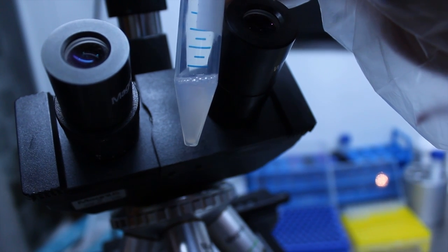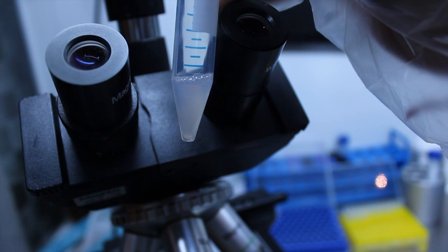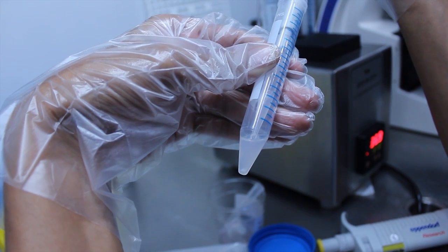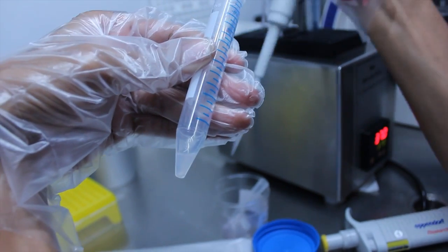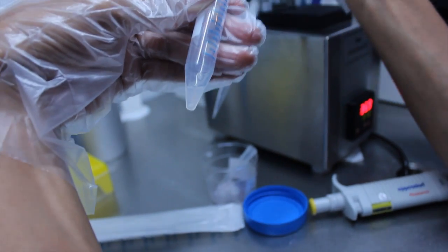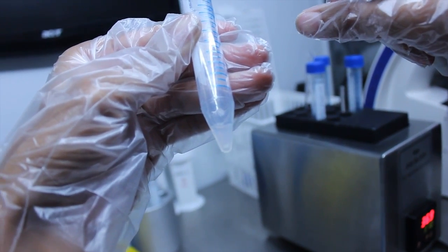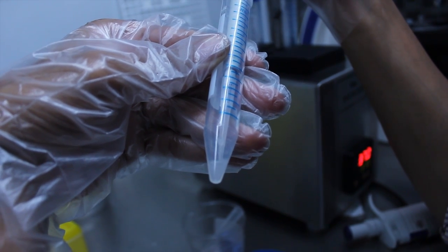The pellet contains motile and non-motile sperms which can be frozen using the freezing media. We throw the supernatant off, keeping only 0.3 to 0.4 ml of it. The pellet is thoroughly mixed.